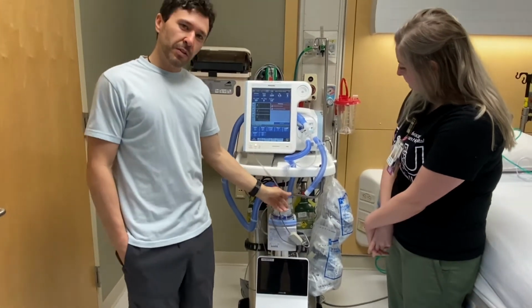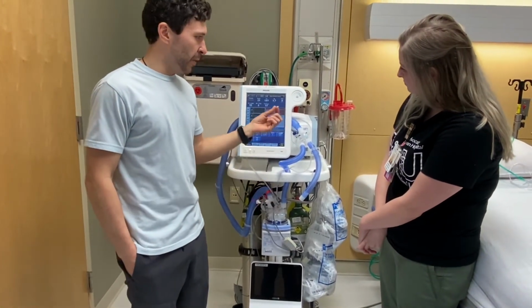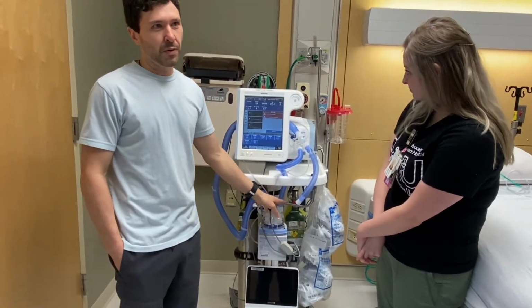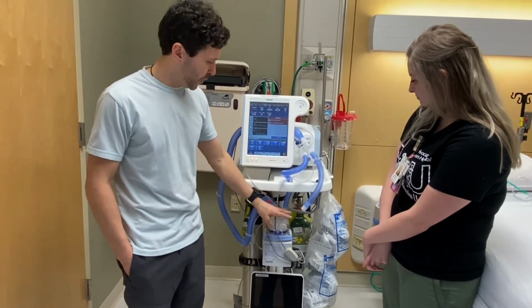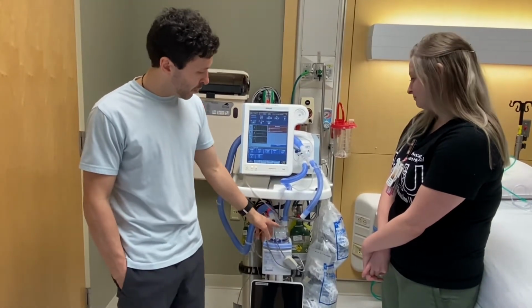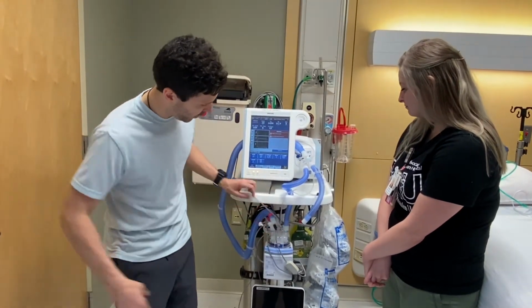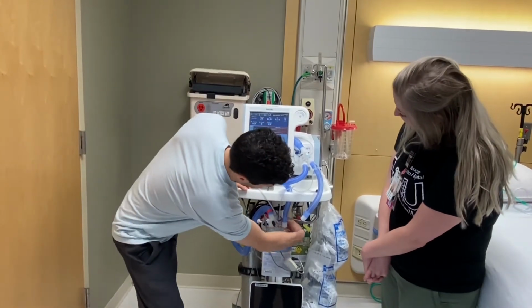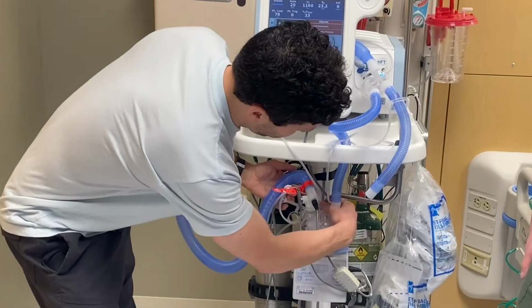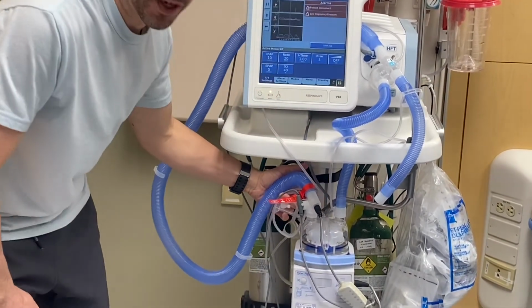And these also have the same heaters as the OptiFlows. The problem that I discussed with the OptiFlow, with the tubing kinking, this is the number one issue here. I've seen it on the OptiFlow a couple times, but I see it the most with this area here, because this is where the line for the water runs down. The tubing is back here. You can probably barely see it, which kind of plays to my point.